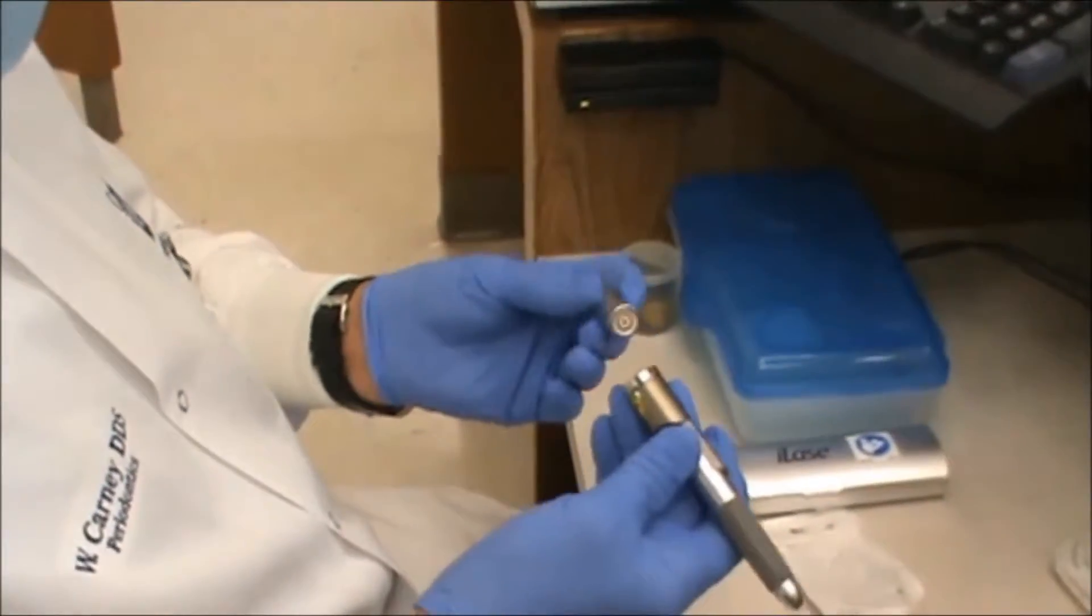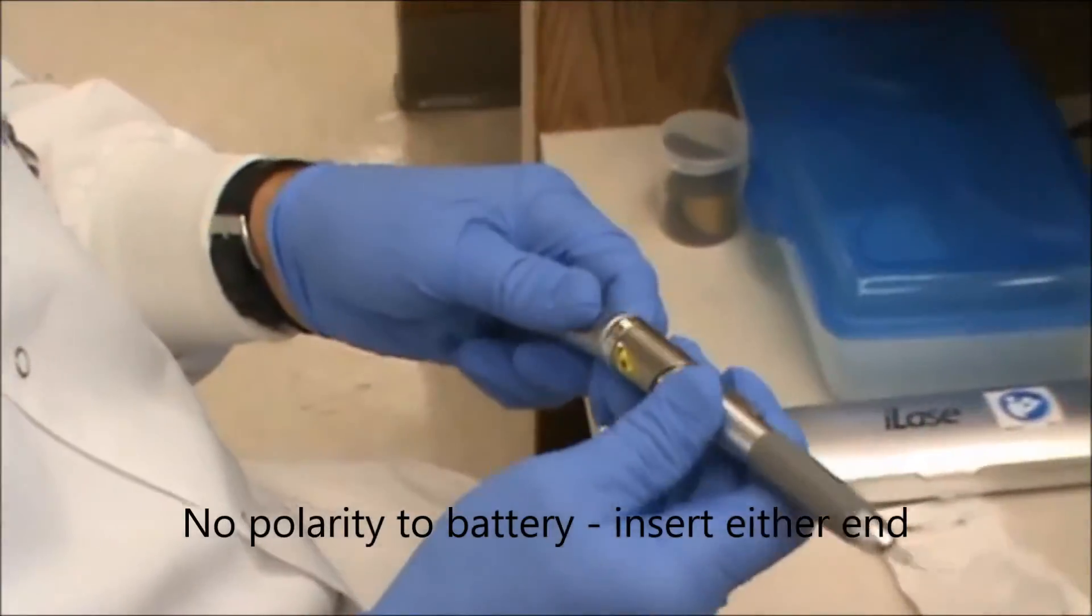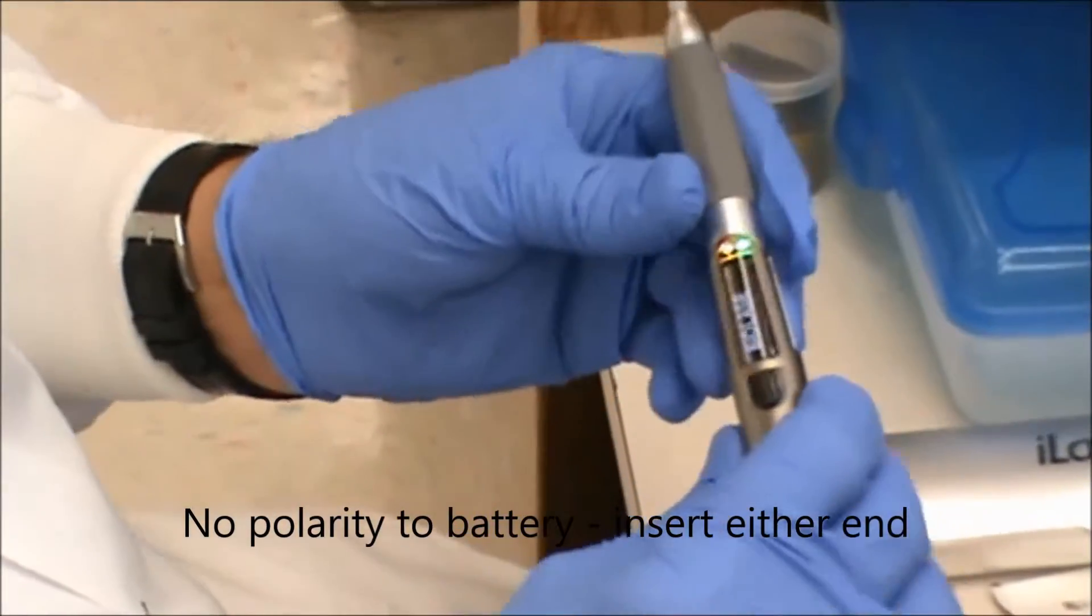Next, we're going to apply the battery. It can go on either end, which will turn the device on.